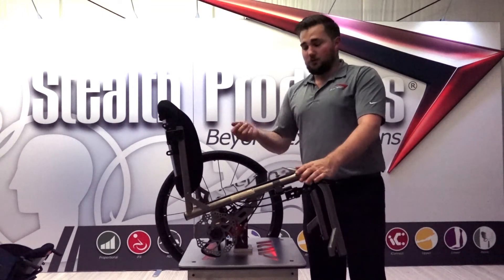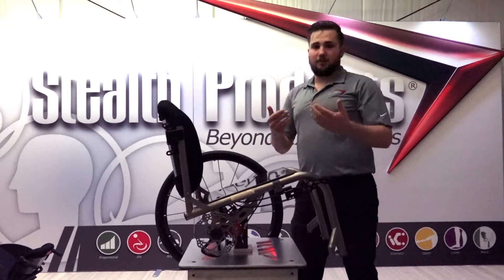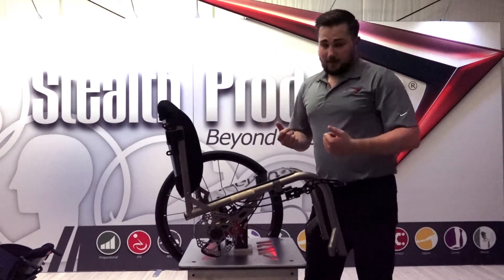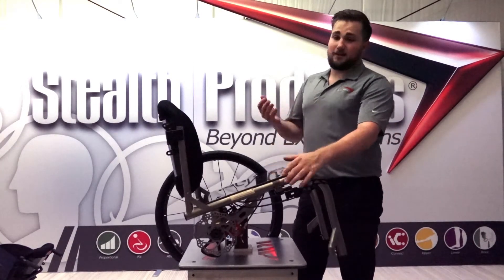To put it quite simply, if you're going downhill and you squeeze the right lever, you'll turn right. So you have full ability to steer the chair, control the chair, and still maintain that locking capability for safe transfers.